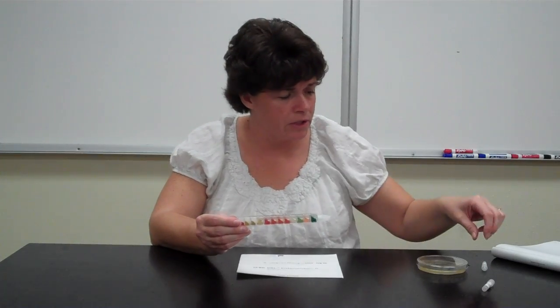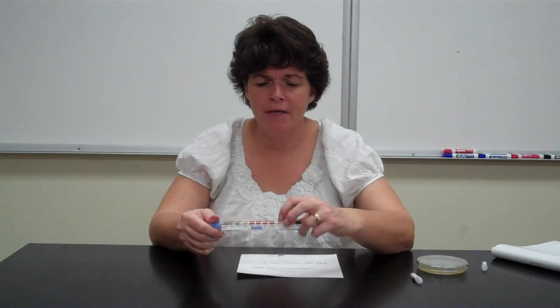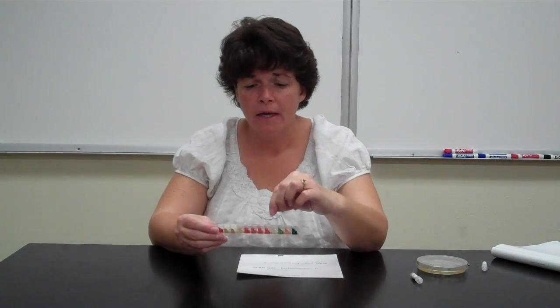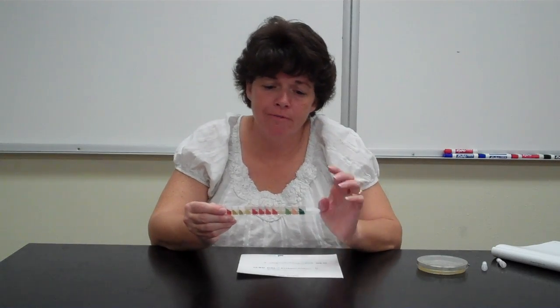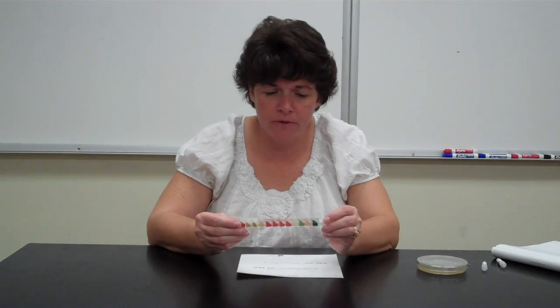Okay, the other one that you can do is the VP test. So if necessary, you'll do the same thing with the VP compartment, which is the 4th to last. And once again, you'll use the flame and you'll burn a hole in it. And then the VP reagent B is what you will use. Same thing, you'll break the ampule and you'll squeeze it and drop a drop in there. This you actually have to wait 20 minutes for a result. So hopefully, if you have to do it, you have other things that you can do during that 20-minute time. Okay, that will come up with a red color if you need to do that one.